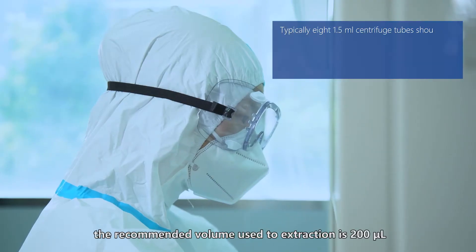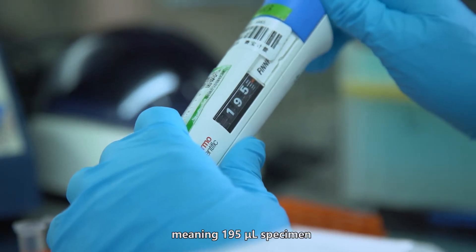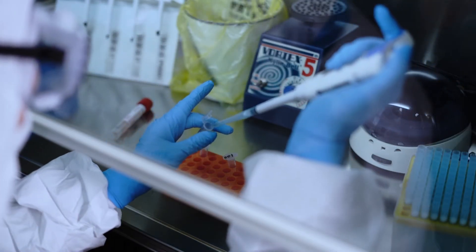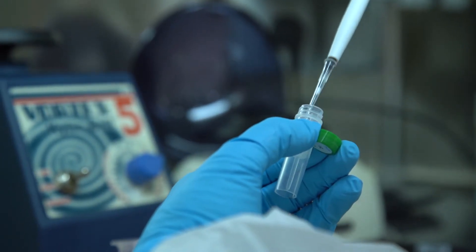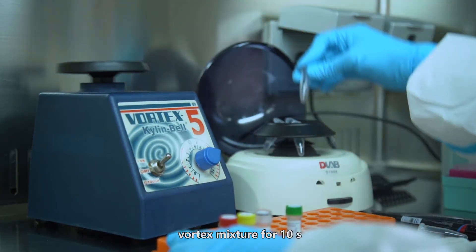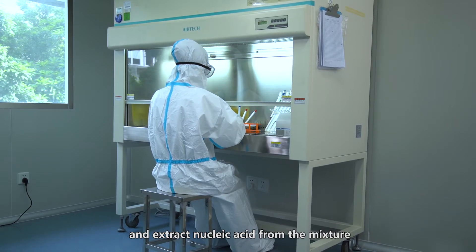The recommended volume for extraction is 200 µL, meaning 195 µL specimen plus 5 µL IC. After adding IC, vortex the mixture for 10 seconds, briefly centrifuge, and extract the nucleic acid from the mixture.